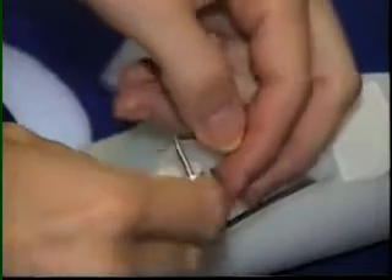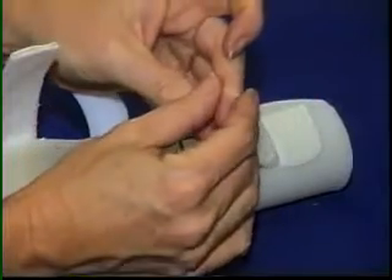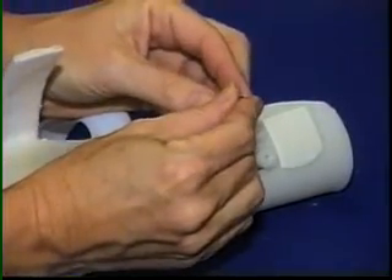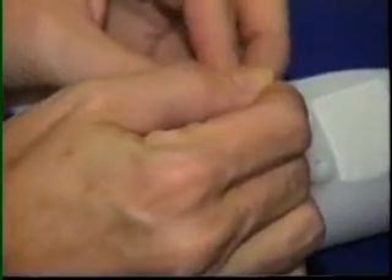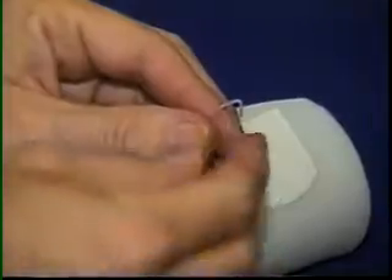The lines of the finger cuff are threaded through the wheel by folding the line at its thinnest part. Once threaded, the line is folded at the thick area and creased so that the rubber band or spring will be centered. If a rubber band is used, it is attached to the line.